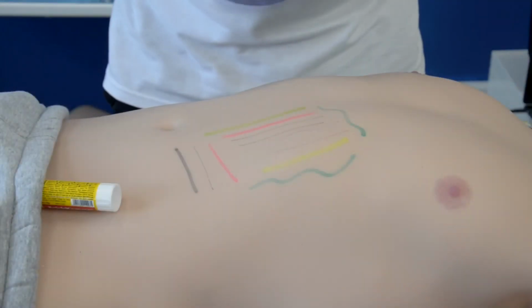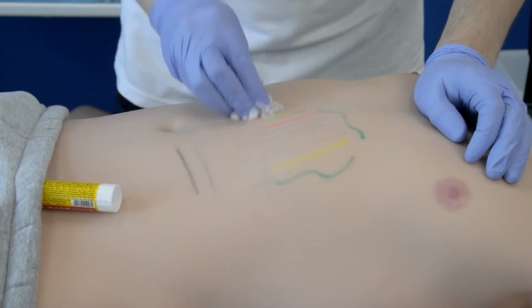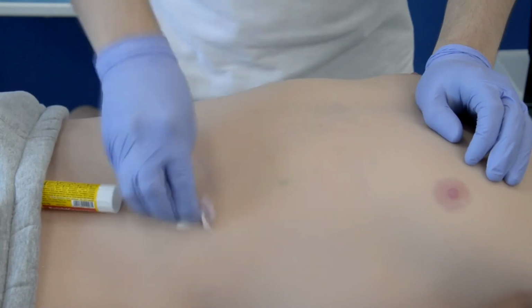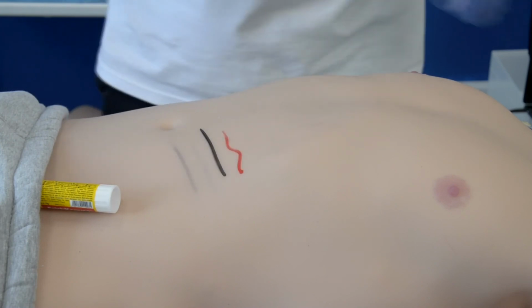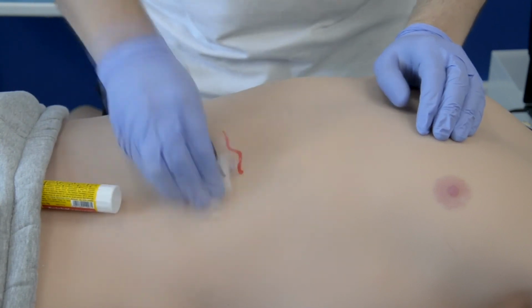You can write, paint, use whiteboard markers and alcohol-containing markers, pencils, and even glue on Leonardo. Everything will wipe off easily, making it the easiest to care for a patient sim and prolonging his good looks. You can even use alcohol-containing solutions to disinfect the skin. Skin on a patient simulator has never been so easy to maintain.